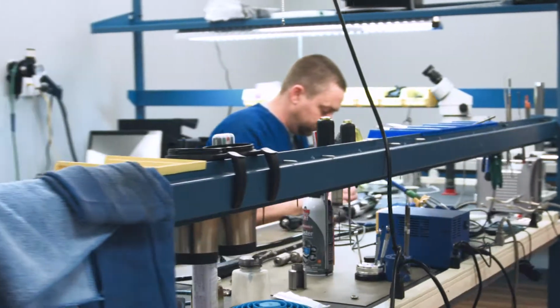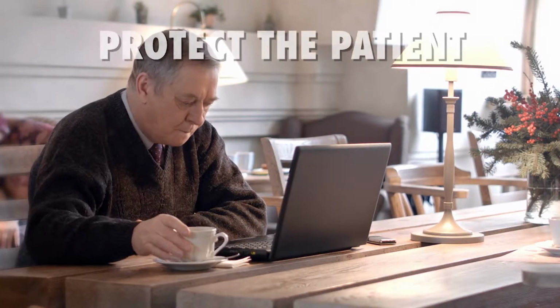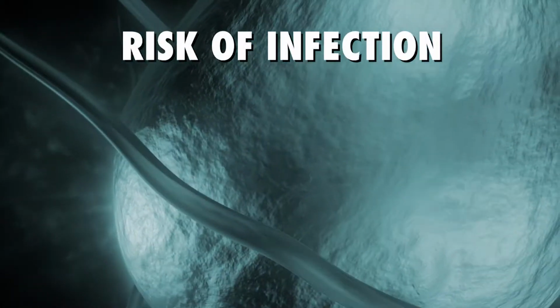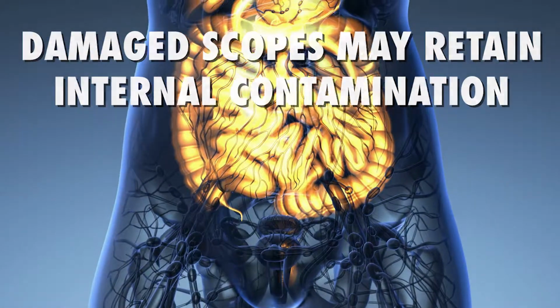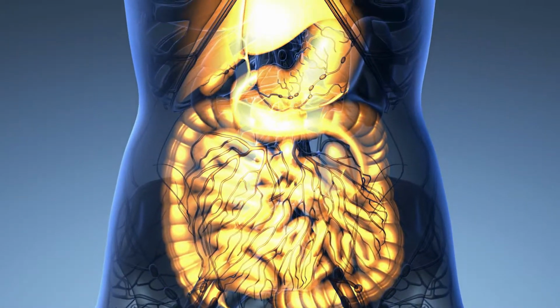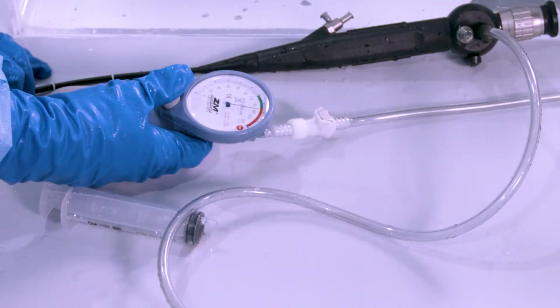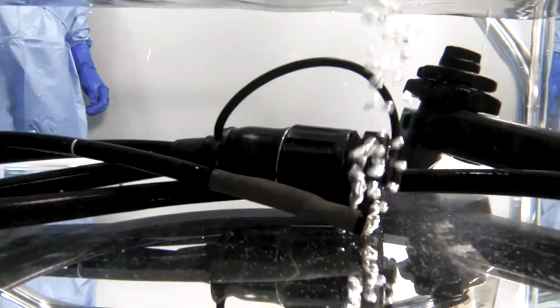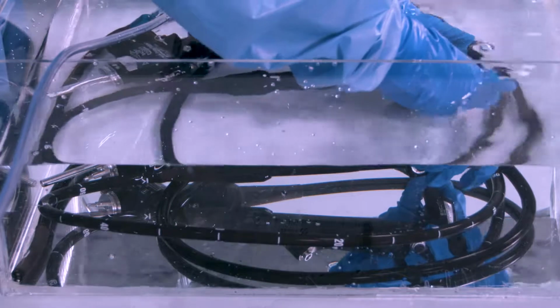Why is flexible endoscope leak testing so important? There are three reasons. First and foremost, to protect the patient. Endoscopes that leak pose a potential infection risk for subsequent patient use. Many times, endoscopes are damaged during patient use and may retain internal contamination in the damaged area. Even a leak in a non-patient insertion area, such as the light tube or EO connector, may pose a risk. To be very clear, an endoscope with a leak must be removed from service and repaired prior to reuse.